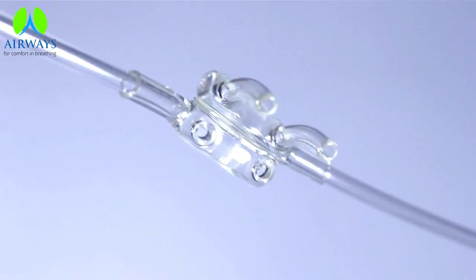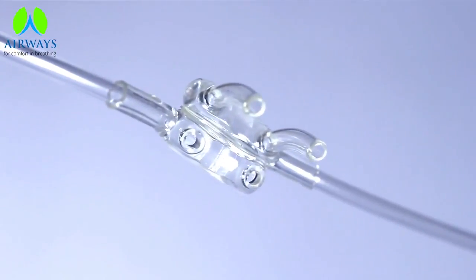It does not need to be humidified. Oxygen will flow from the nasal cannula into the patient's nasal pharynx. As an adult, oxygen can be administered at 6 liters per minute.